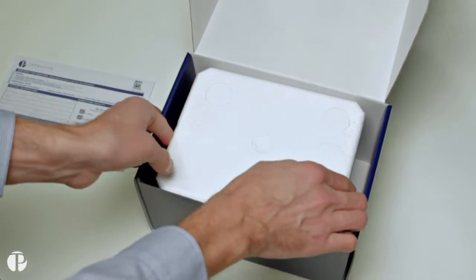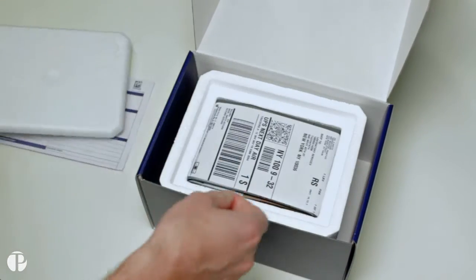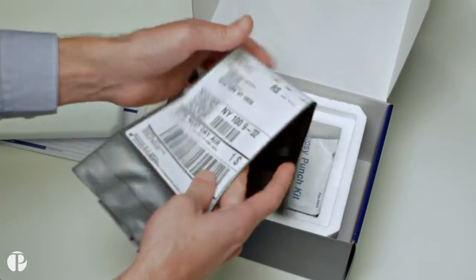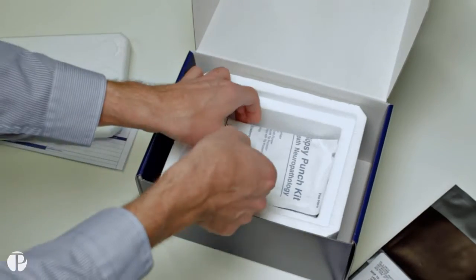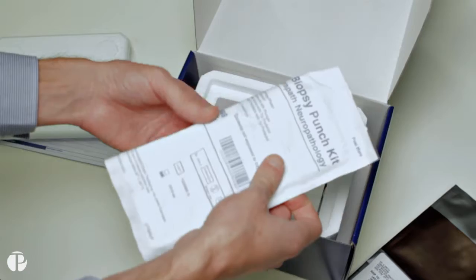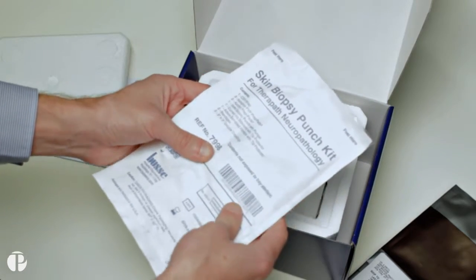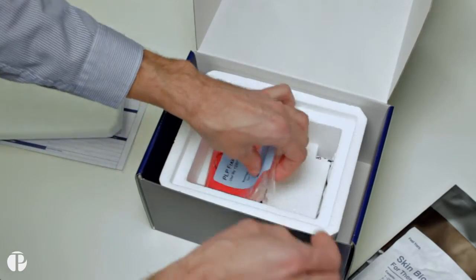Open each kit for proper storage. On top of the cooler, you will find a requisition form and a shipping information card. Inside the cooler, Therapath provides one return pack, one punch biopsy kit, and one set of fixative vials.